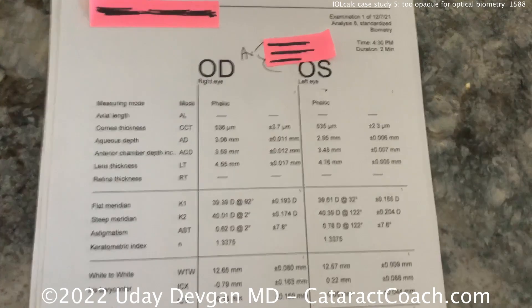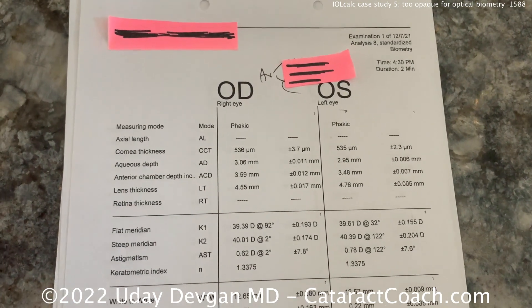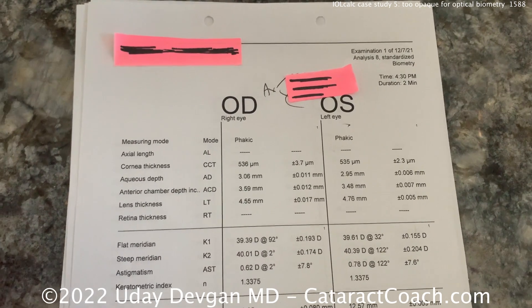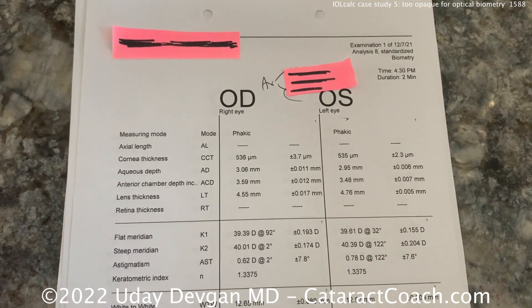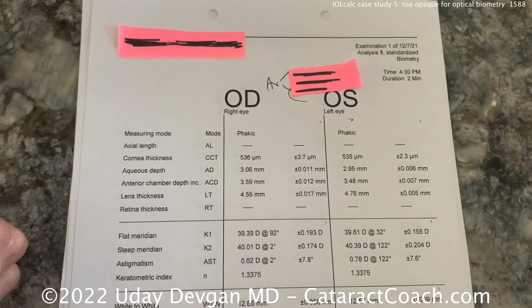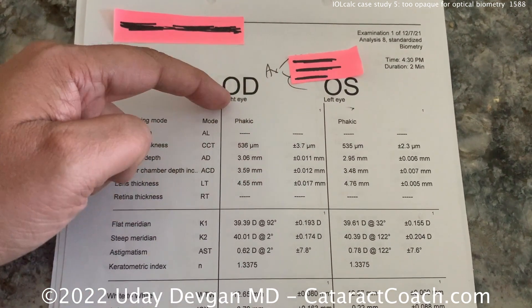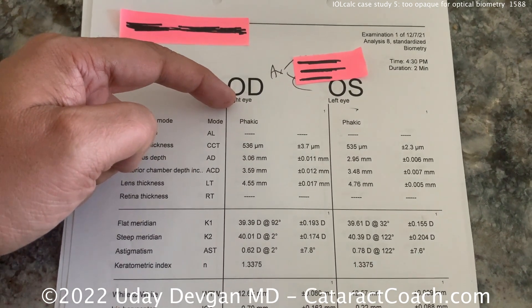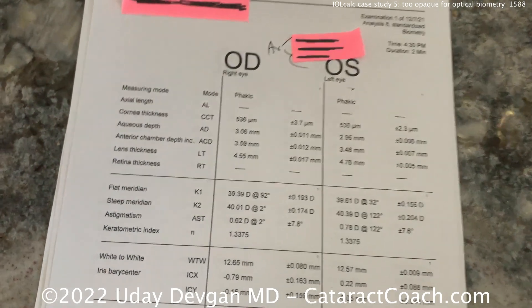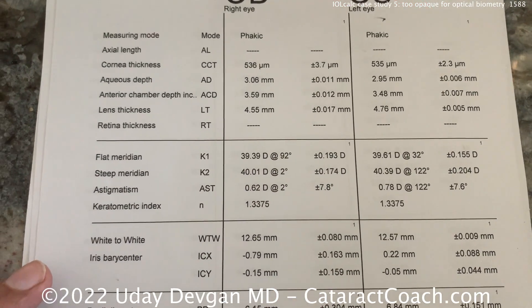Another similar case: the patient has such dense cataracts that in both eyes you're unable to get axial length measurements. Sometimes it's a dense nuclear cataract, a white cataract, or extensive posterior subcapsular cataract. The catch in this patient is a history of dense amblyopia in the right eye and normal vision in the left, with a history of anisometropia where the left eye was myopic and the right was hyperopic. The rest of the biometry — cornea, AC depth, lens thickness, K's — is pretty similar between the two eyes.